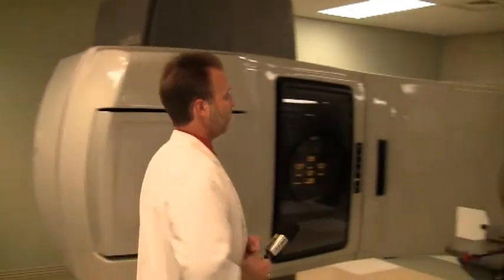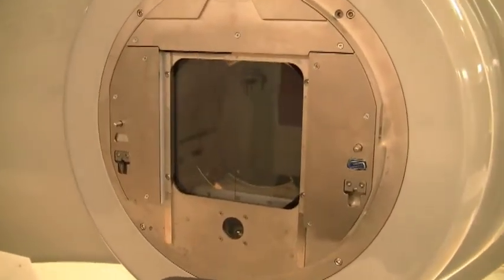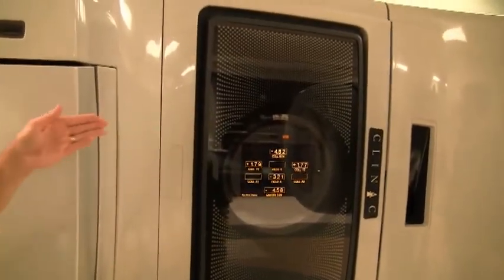This particular linear accelerator is utilized for a certain series of our treatments. The radiation comes out of the head of the machine. The radiation is produced in the body of the machine by an electron gun that propagates electrons down a vacuum tube utilizing radio frequency waves. The electrons go through a bending magnet and strike a target to create x-rays — very high energy x-rays.